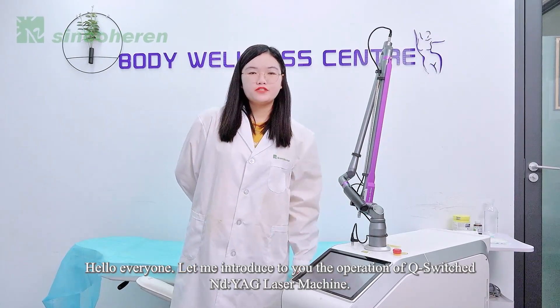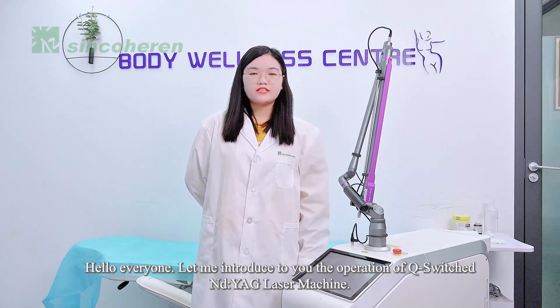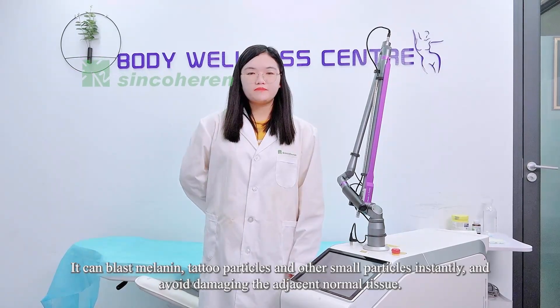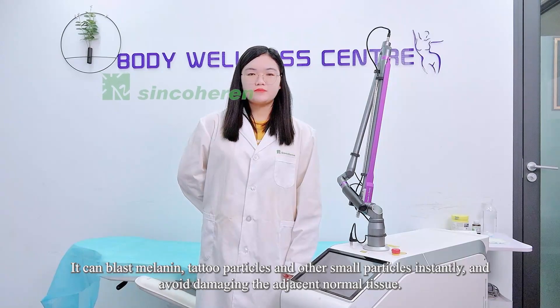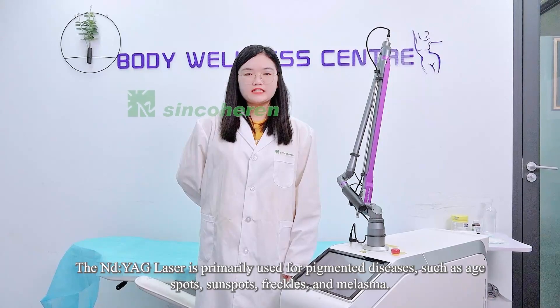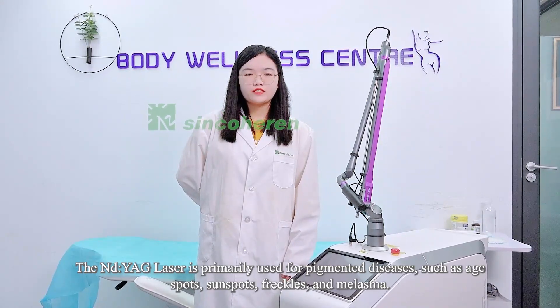Hello everyone, let me introduce the operation of the Q-switched Nd:YAG laser machine. The principle of the machine is selective photothermolysis and laser Q-switched technology. It can blast melanin, tattoo particles, and other small particles instantly while avoiding damage to the adjacent normal tissue. The Nd:YAG laser is primarily used for pigmented diseases such as age spots, sunspots, and freckles.